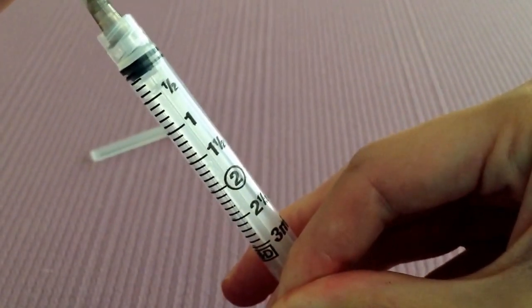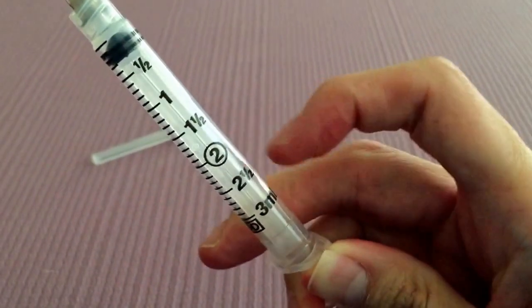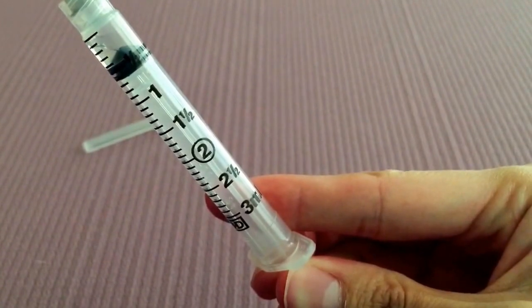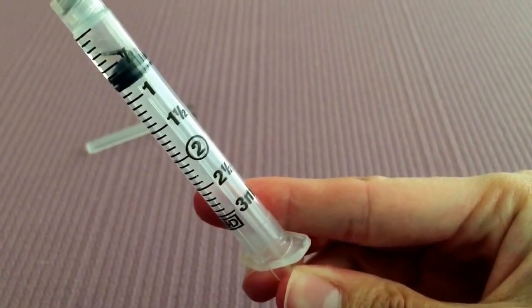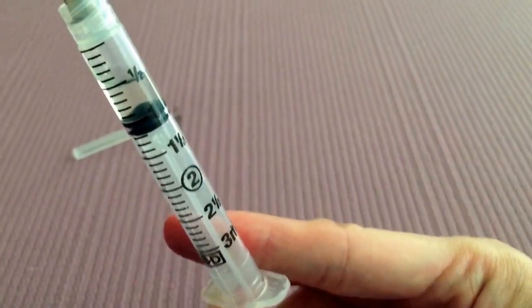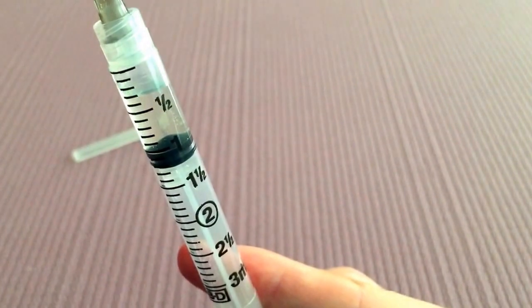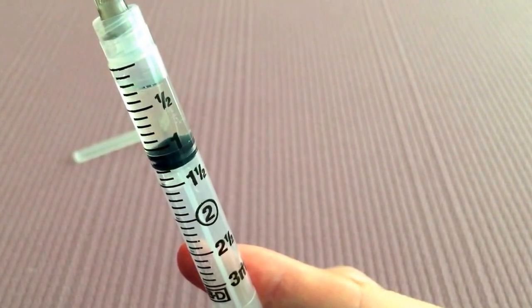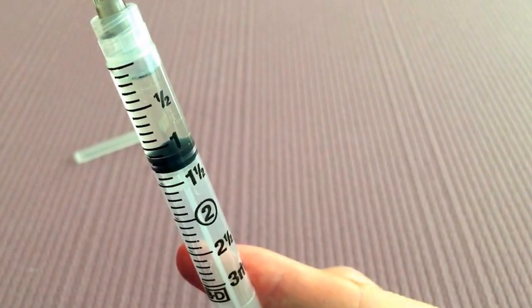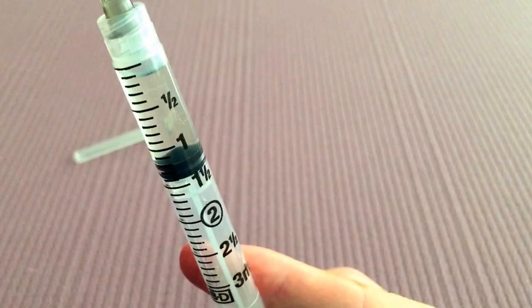And just be aware, like I said, it's highly pressurized so it might be a little bit difficult, but slowly start to pull back on the plunger. And you'll notice that the liquid just kind of falls in. So let's pull this to the 1 ml mark and just wait for the liquid. Don't worry too much about the air bubbles. We can always get rid of those later.